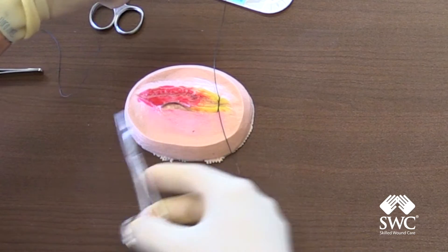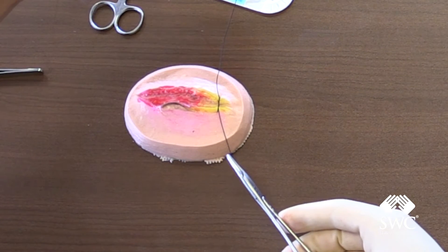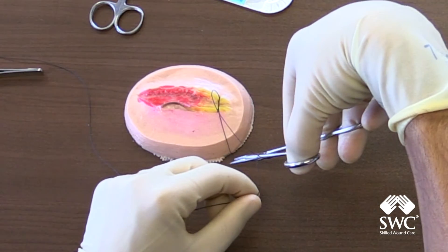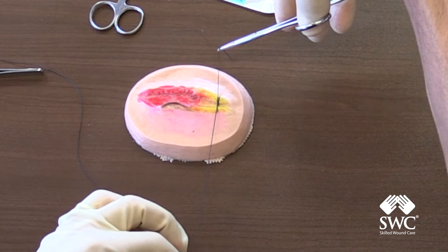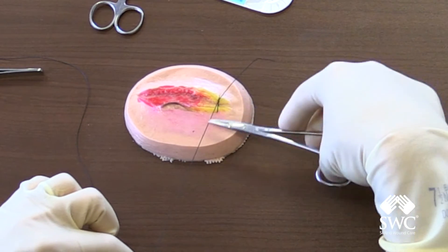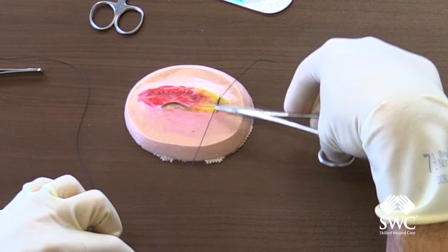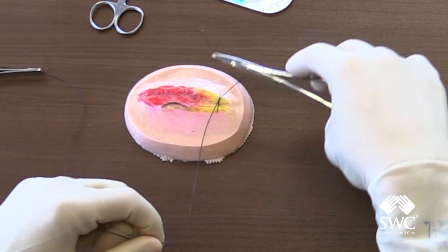And then we'll go back. Now the easiest way to remember this — to go the other way — is you'll go inside the loop and you'll go this way, then you cross hands again, and then it'll be flat again. So now you have two: the first one was a double loop that was a flat knot, and then the second one was a single loop flat knot.